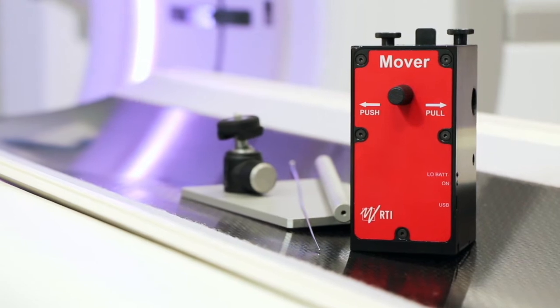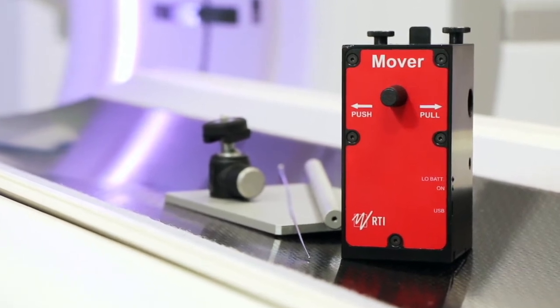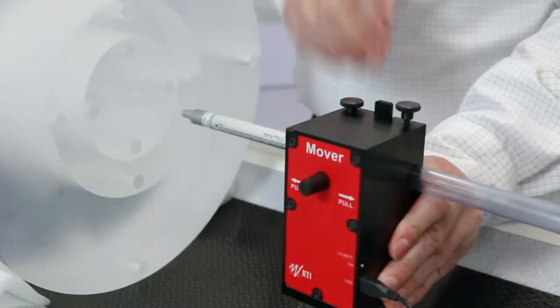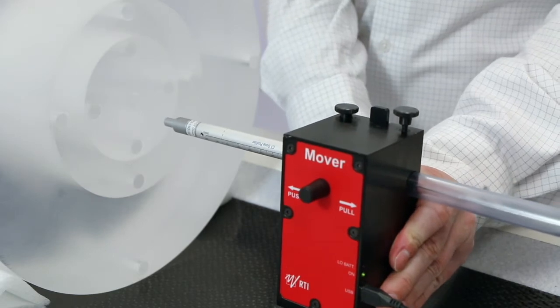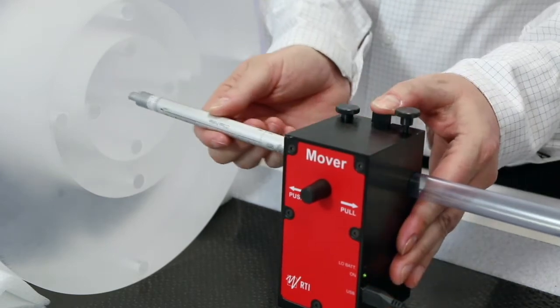In this instructional video we will show you how to carry out a CT-DI measurement using the Piranha together with the RTI mover and CT dose profiler.